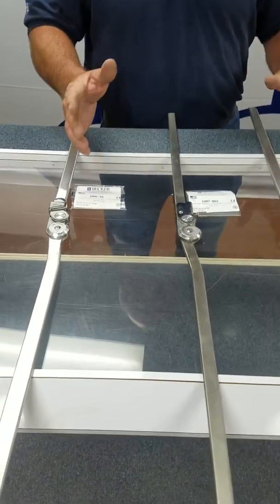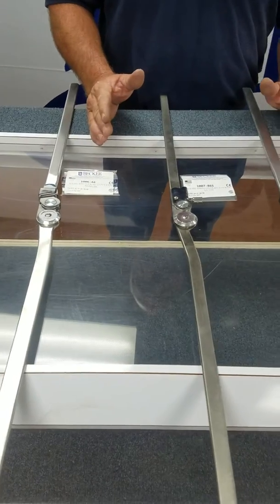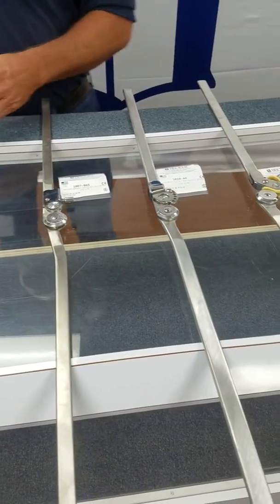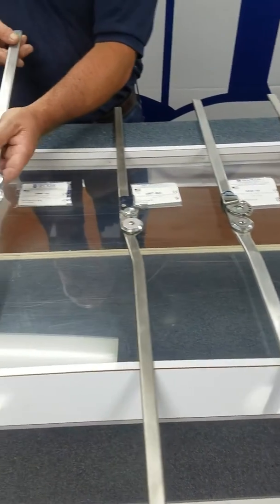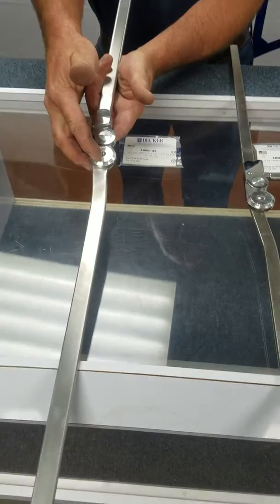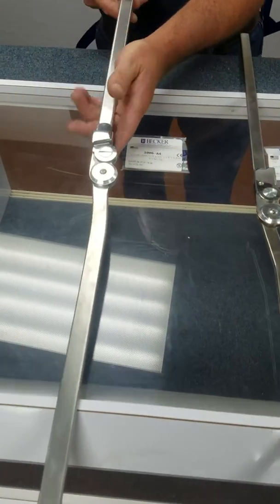Also, each of the joints comes with different functions. Our model 1006 is a ring lock with adjustable flexion.